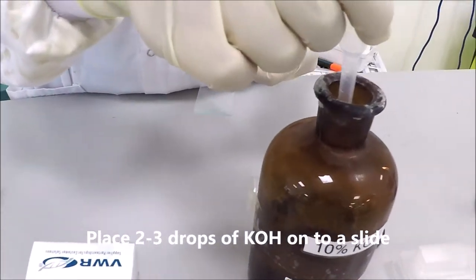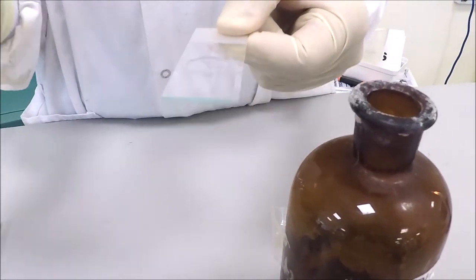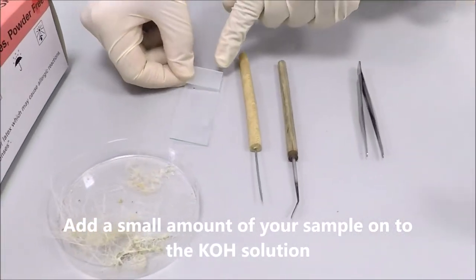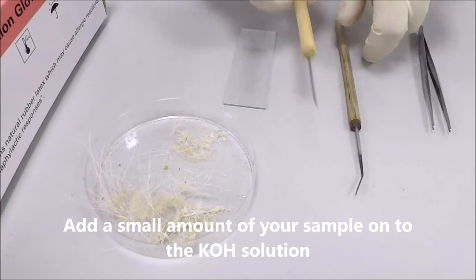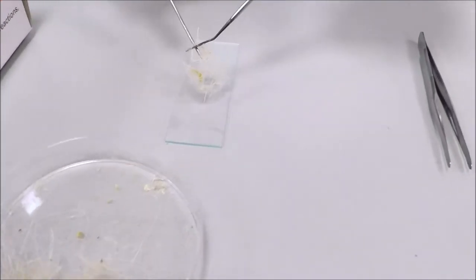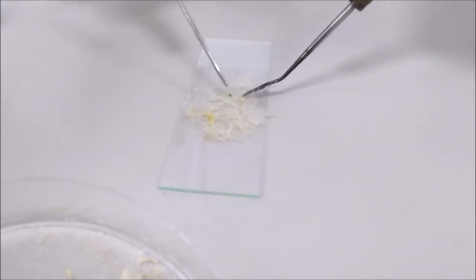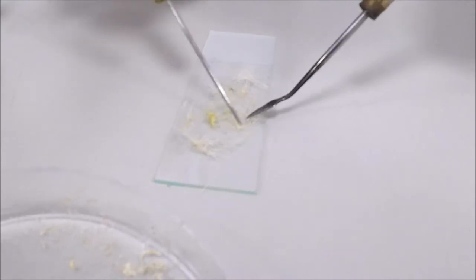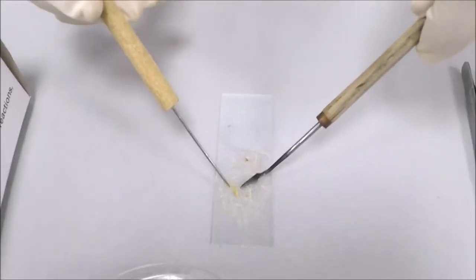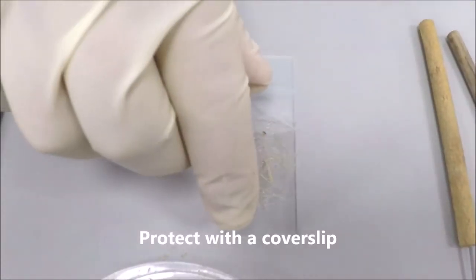Taking your KOH solution, place two to three drops onto a slide. Add a small amount of your skin sample onto the KOH solution. Try and spread it as evenly as possible and do not make it too thick. To protect your sample, place a cover slip on top.